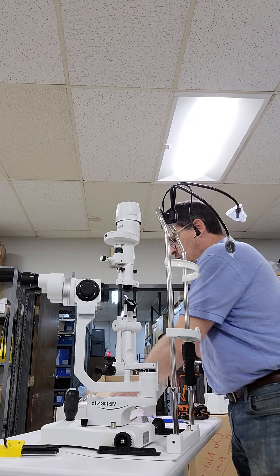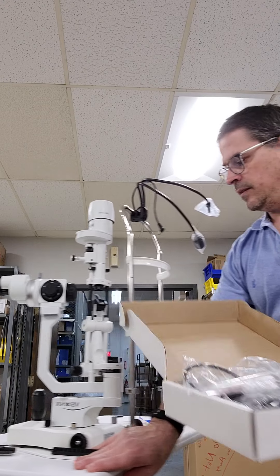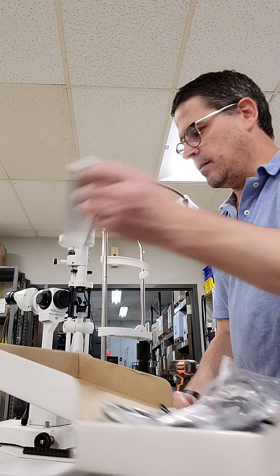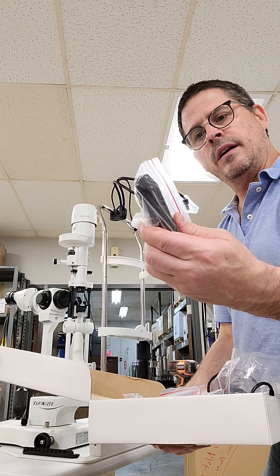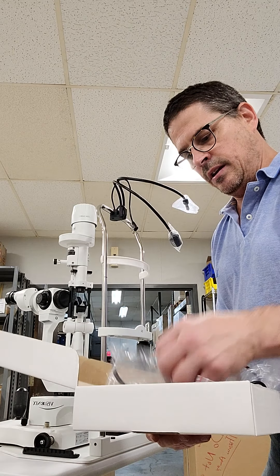In your kit there are going to be some other items that will be used. You're going to have your side rails — there are two side rails. And there are handles for the patient to hold when they're positioning themselves in the slit lamp.